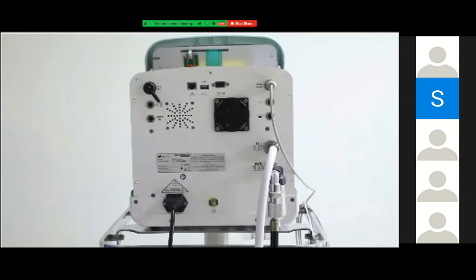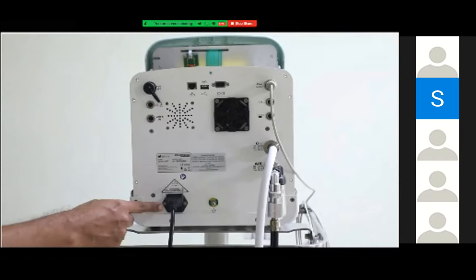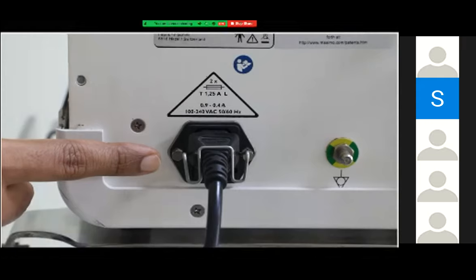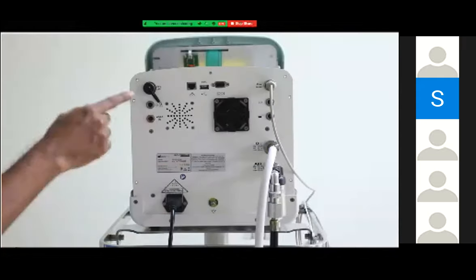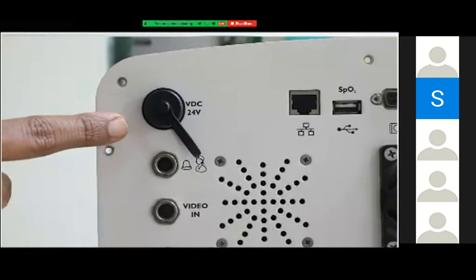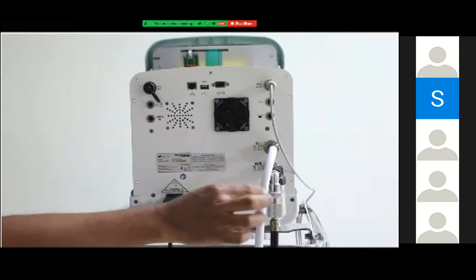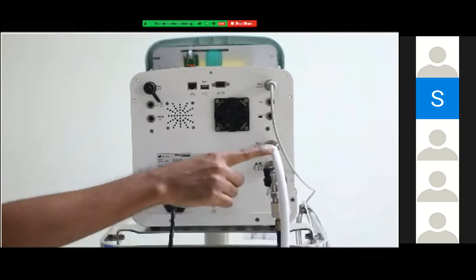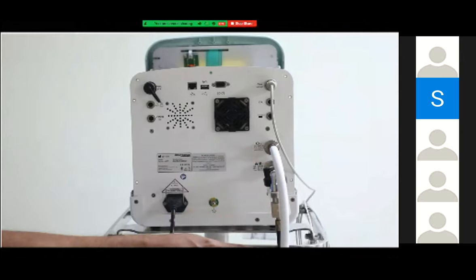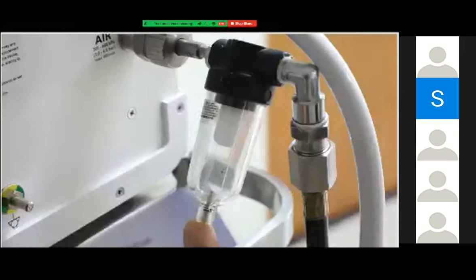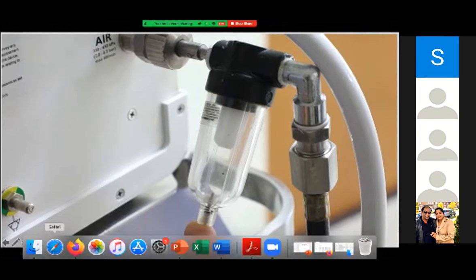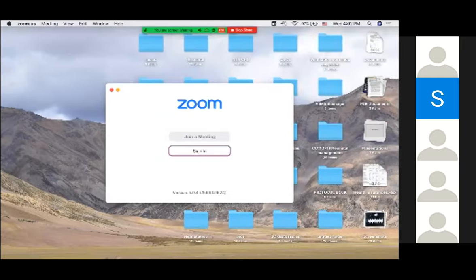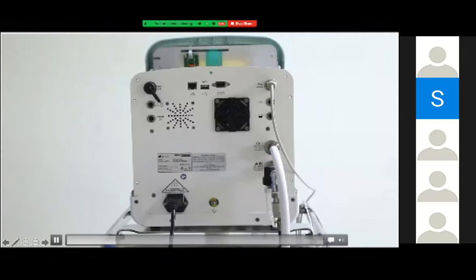I will be showing you the components of the ventilator — the entry and exit points. This is the back panel of the ventilator, where we have the power entry point for AC current, which takes 220 volts input, and also a connection for DC current, which is optional. These are the power inputs. This is followed by gas inputs — one for oxygen and one for air. The oxygen tubing is always white and the air tubing is black. This filter is used for the air port, because the centralized supply of air has some humidity that can be damaging to the ventilator.